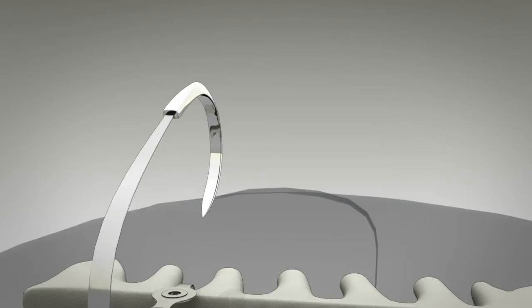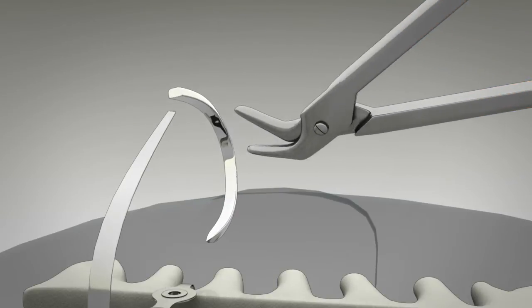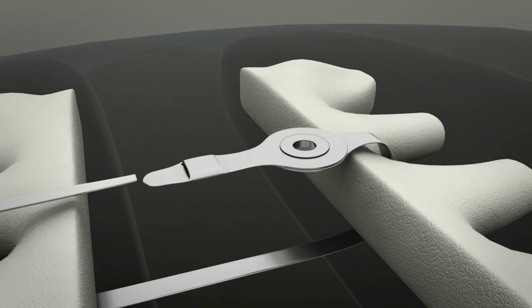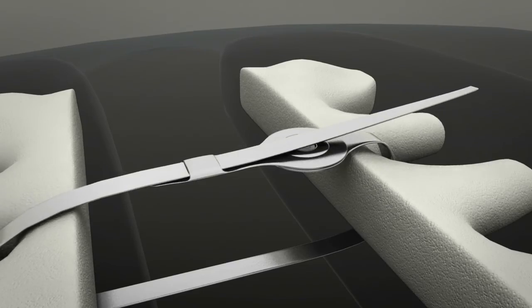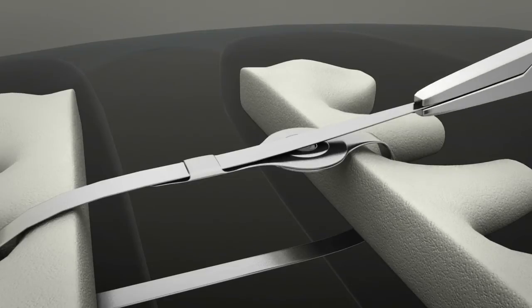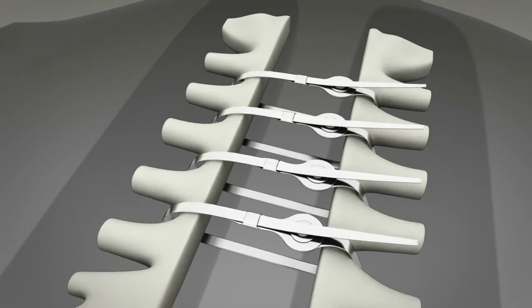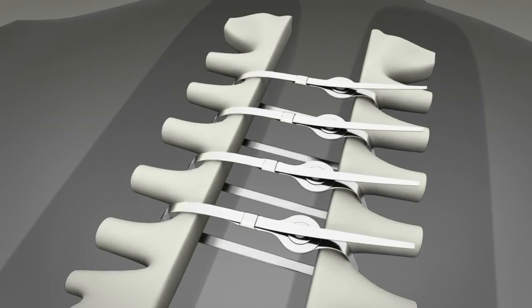Once the device has been delivered, the needle may be cut off near its attachment to the device. Then the end of the strap is placed through the security box and a clamp is placed at the tip to control the strap. The above process is repeated until the desired number of straps have been placed.